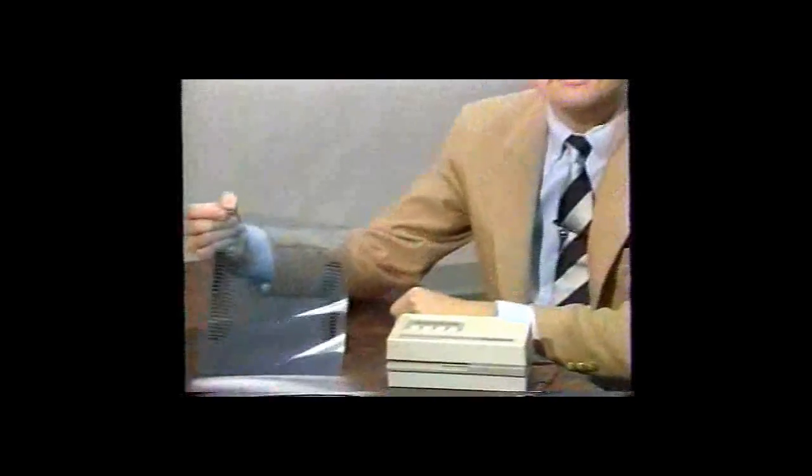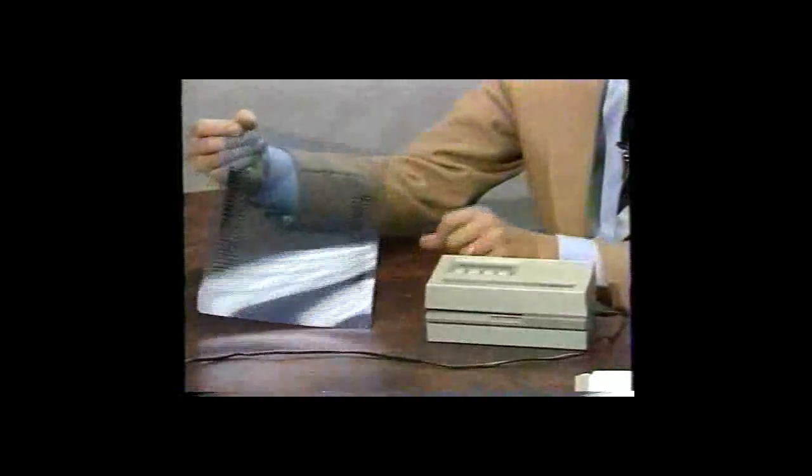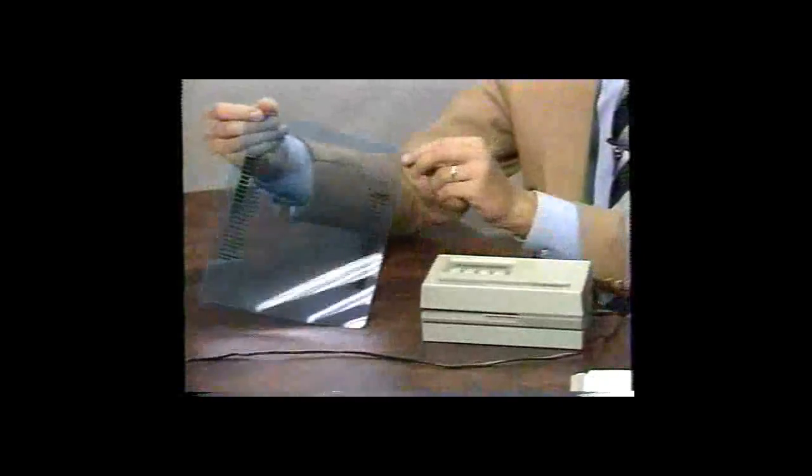Keep in mind these few rules when measuring film on the 381. The film itself must have a 1.1 inch leader of non-image area before the X-Rite logo. This is so that the densitometer can properly recognize and orient itself to the 21 steps of density on the film. Also, you should inspect the film for any flaws or defects, as this may cause the densitometer not to recognize the wedge.